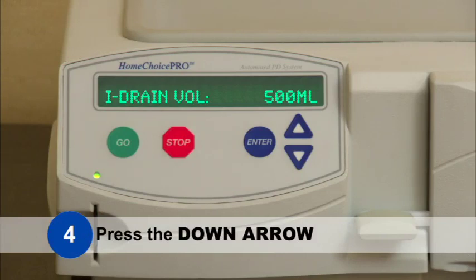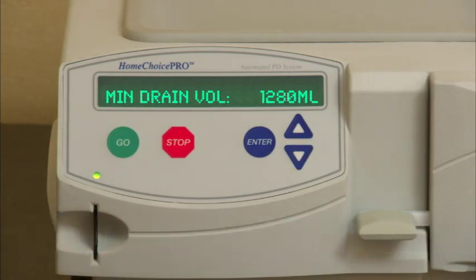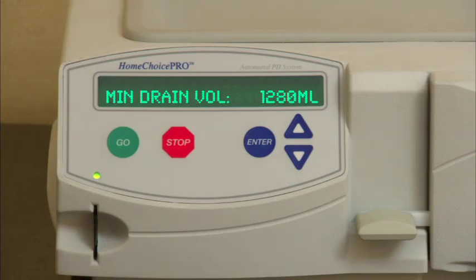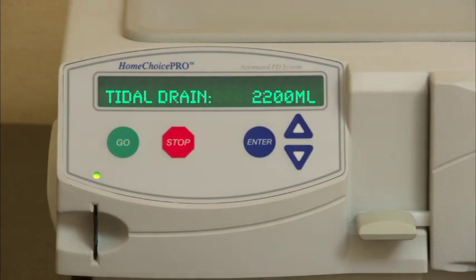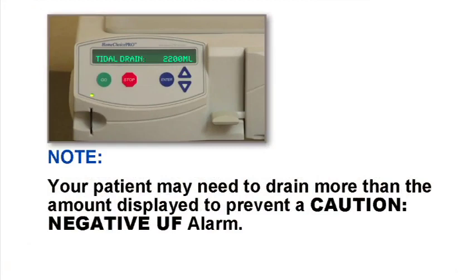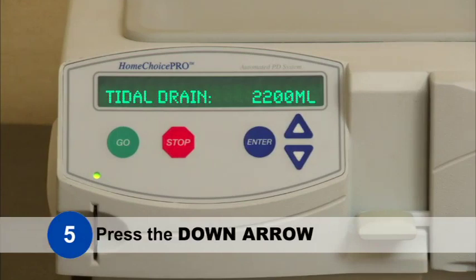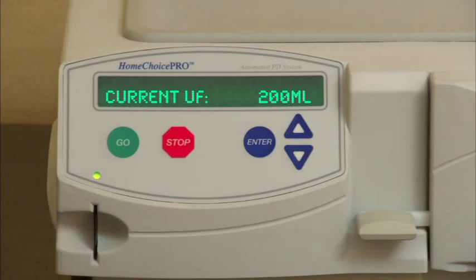Step 4: Press the down arrow again. The minimum volume that the cycler expects your patient to drain in the current cycle is shown. The screen will display one of these messages: Minimum drain volume, with the volume displayed in milliliters, or Tidal drain, with the volume displayed in milliliters. Note: your patient may need to drain more than the amount displayed to prevent a caution negative UF alarm. Step 5: Press the down arrow again. The current UF, updated throughout the drain phase, is displayed on the screen in milliliters.